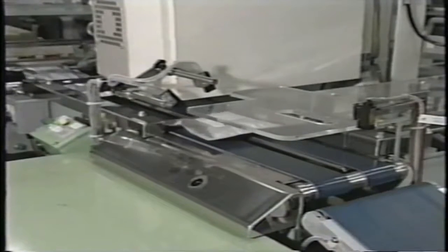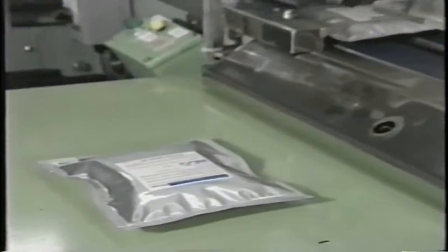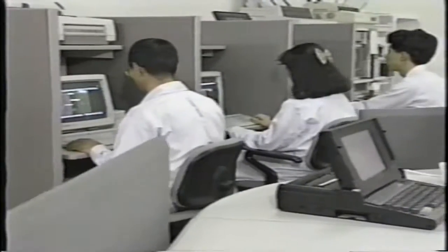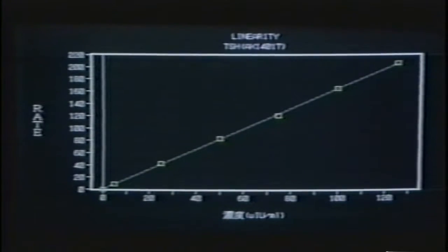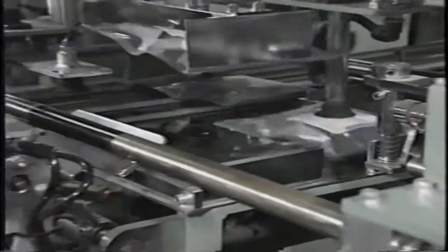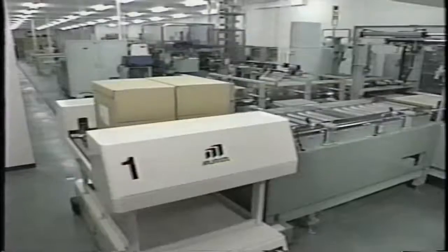To ensure consistency within each lot, the test cups are subjected to regular interval QC testing. These tests include sensitivity, precision, accuracy, recovery, stability, and linearity checks. Then the test cups are automatically boxed and robotically transported to a temperature and humidity controlled holding area, ready for shipment.